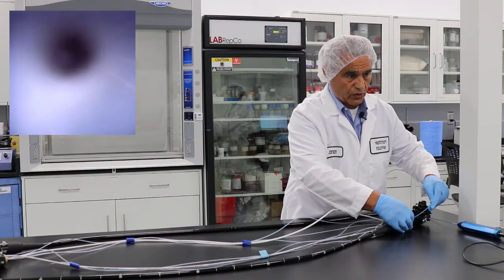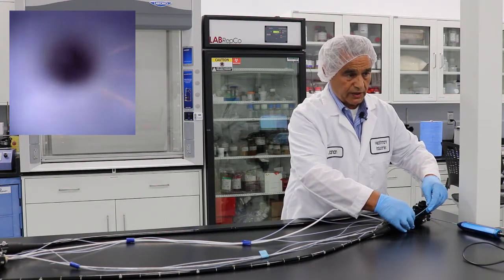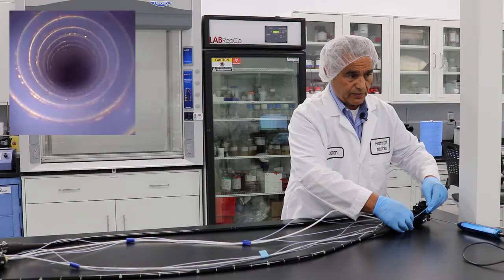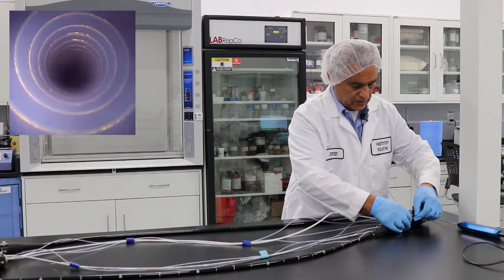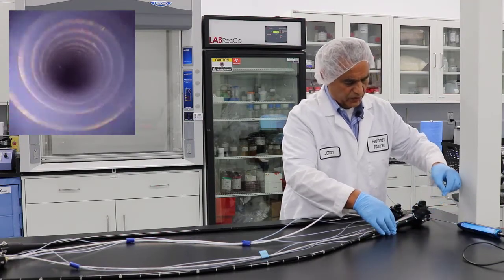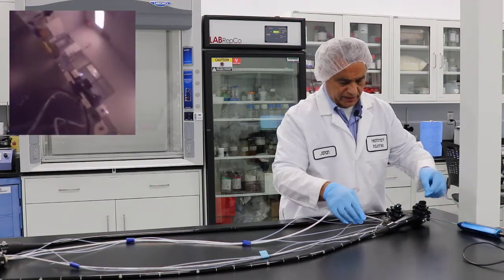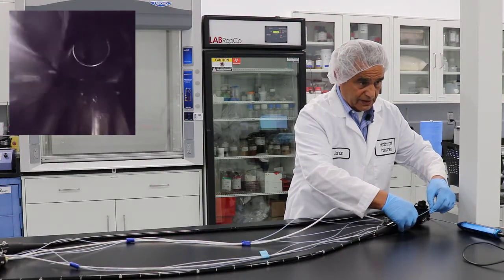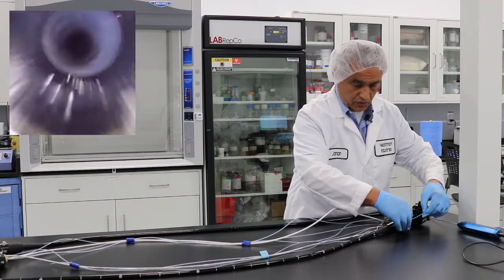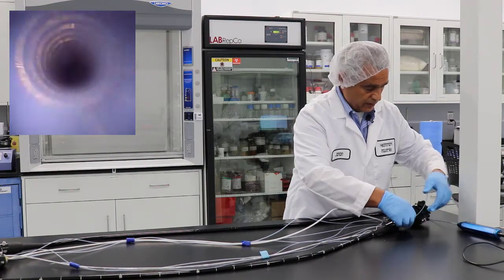Slowly advance and look for debris or any issues. I have some areas here — I can identify and remove them. I'm at about 30 centimeters or so. You just advance slowly to the full length of the scope.